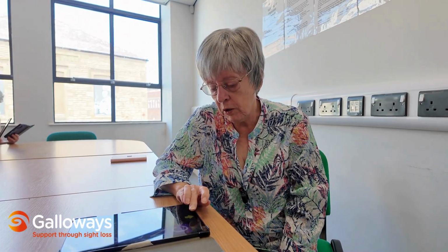Hello, my name is Kay and I'm a service user for Galloways and a volunteer and a huge enthusiast for a system called Synapptic for using your technology for emails and all sorts of other things as well. It's brilliant because it'll work if you can see enough to see these bright colour icons, which then tell you, for example, there's an E there on a red background and it says it's for emails, sending and receiving emails.